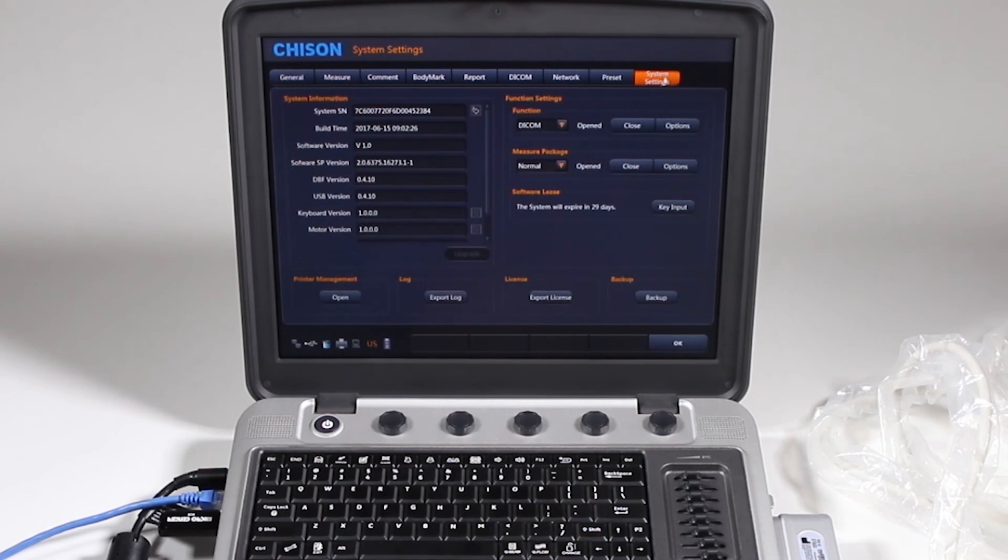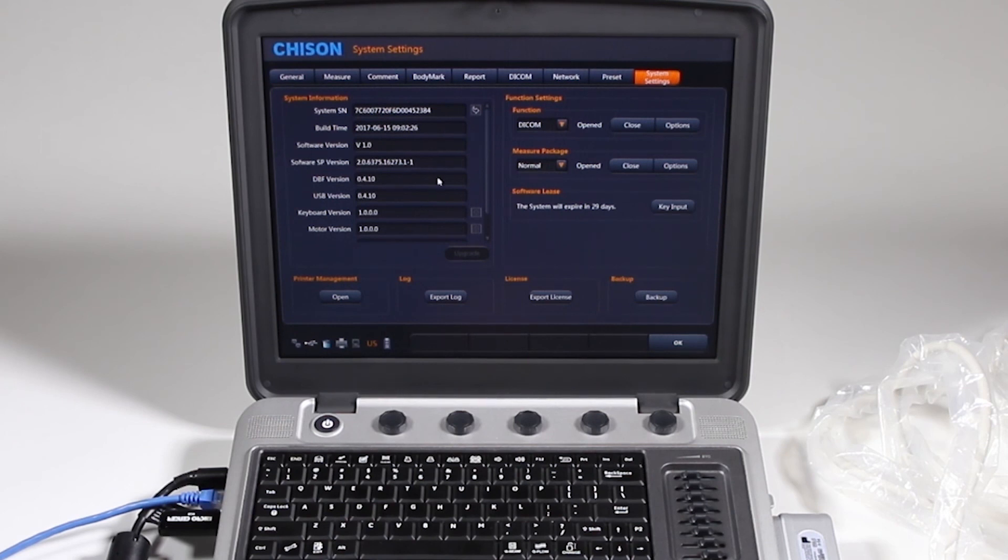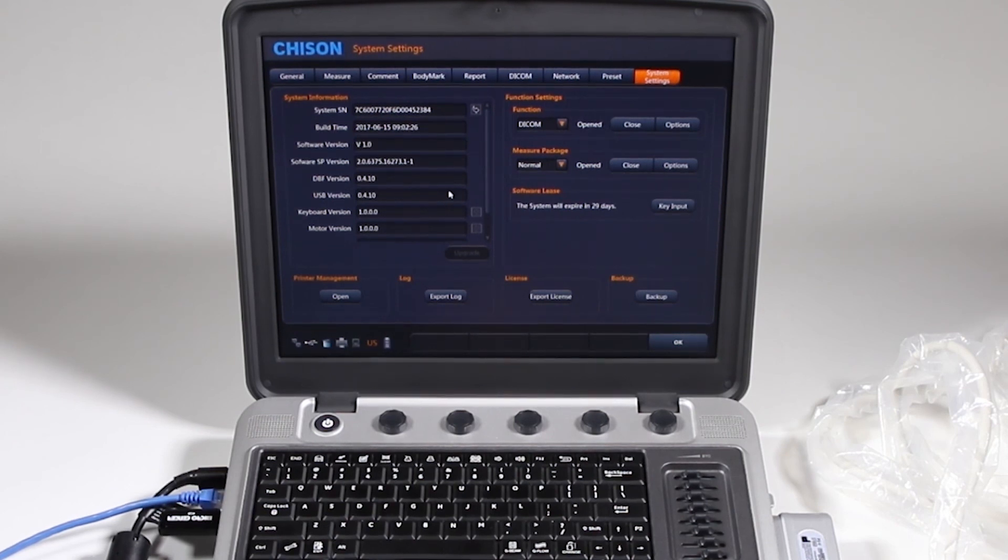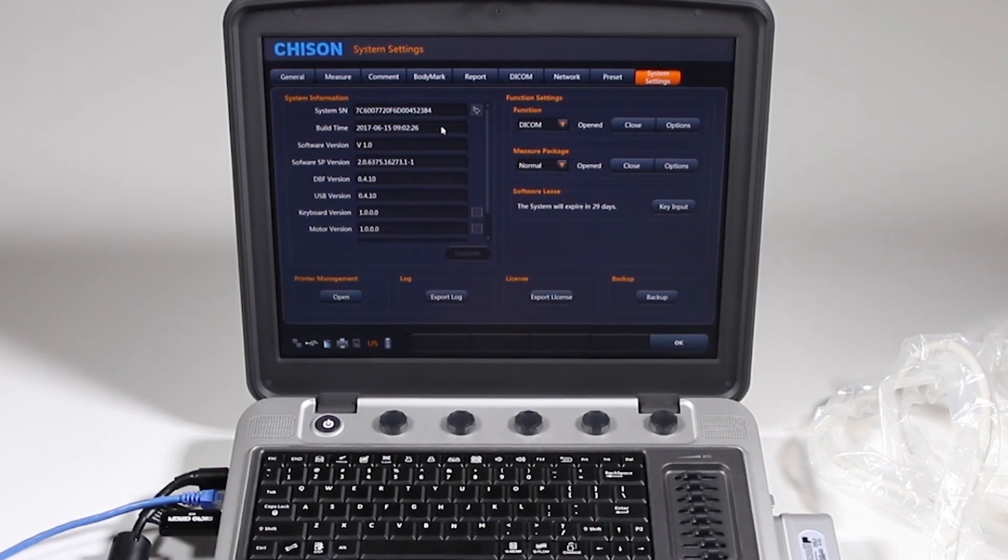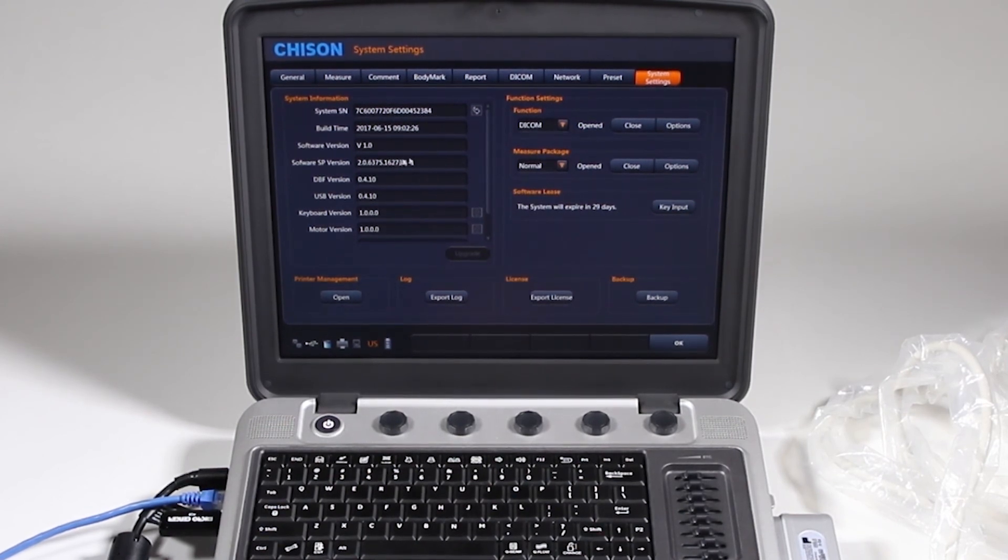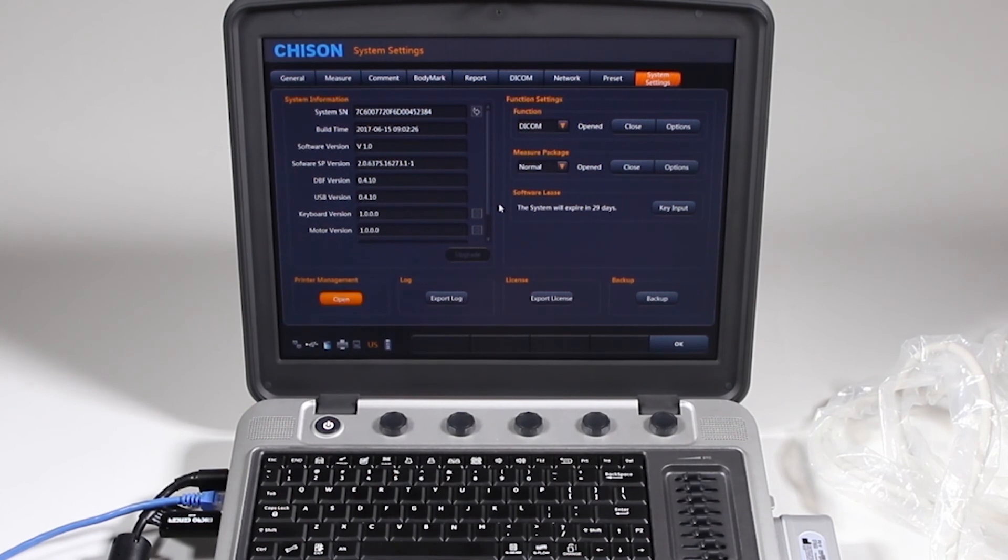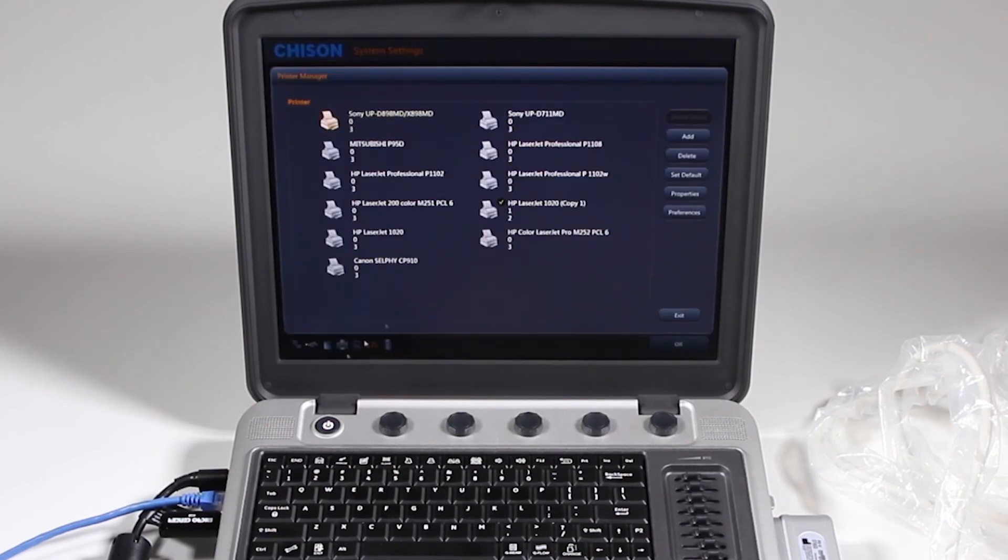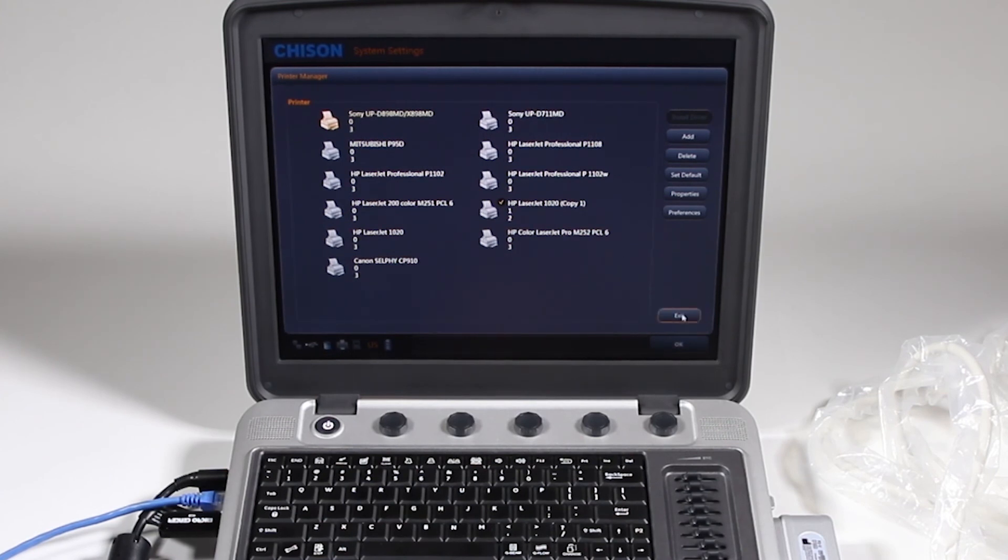And your system settings. This is where you'll go if a technician may be asking you for your software version. Basically you'll want to take a picture of this page and send it to Bravidian or whatever technician whether it's me or someone else will need this to see your system software version. Printer management is the same as what you saw early in a video when you clicked on that. And you can set up your printers that way. These are all the default drivers that are included.